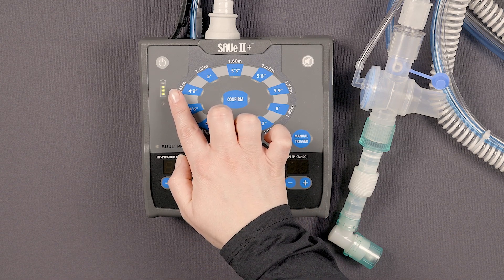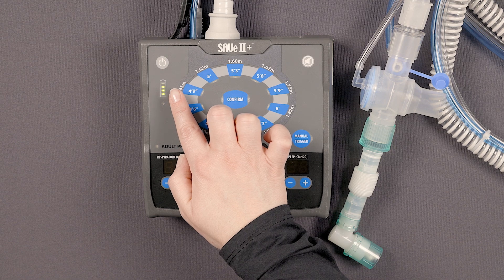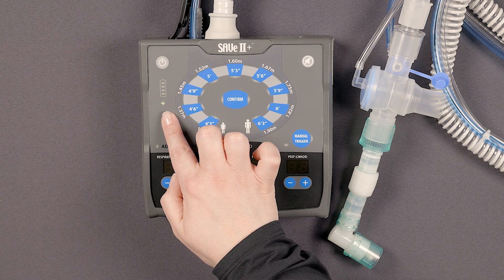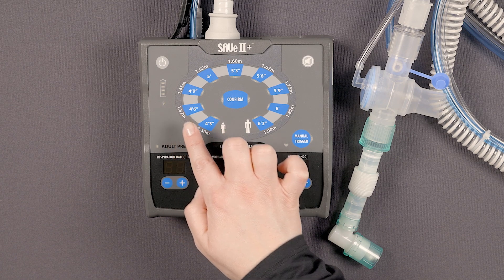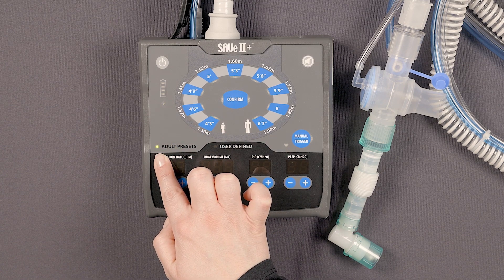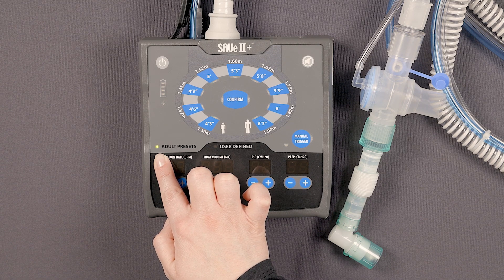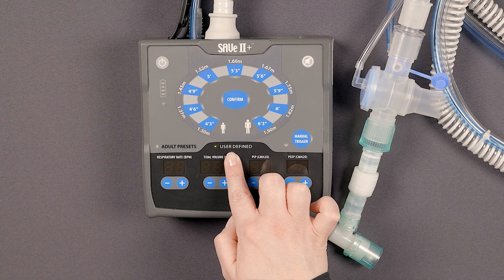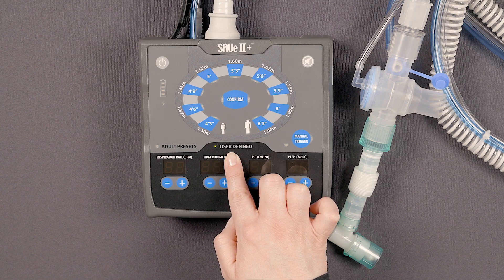This indicator light represents the amount of battery life the ventilator has. This indicator will light up if the ventilator is connected to external power. This indicator will light up if you need to select an adult height preset. This indicator will light up if the ventilator is set to the defined parameters and is ready to use.